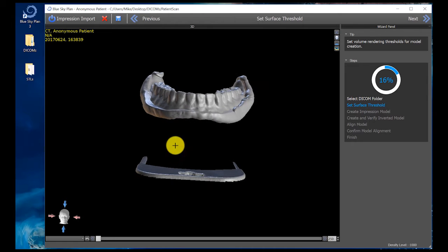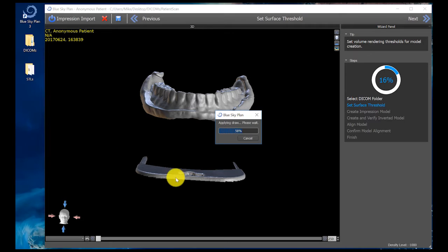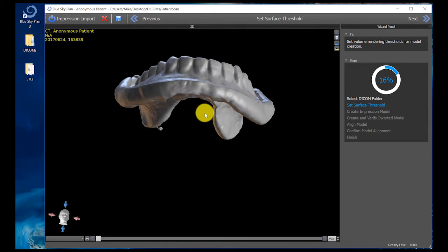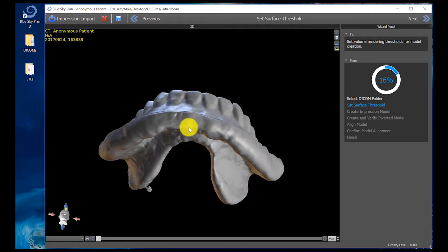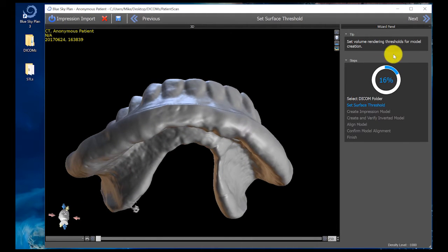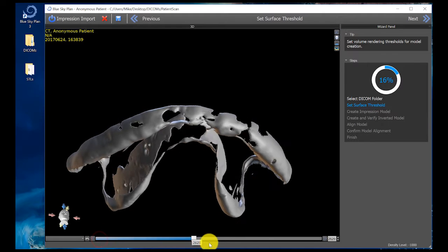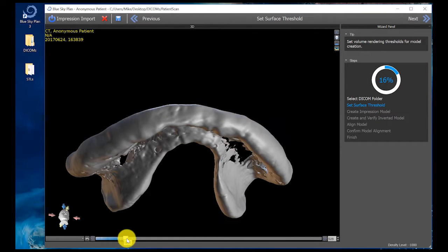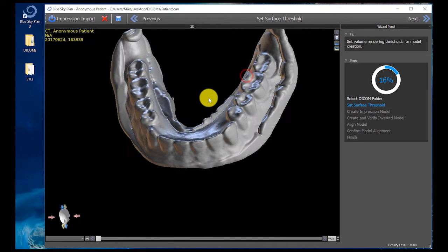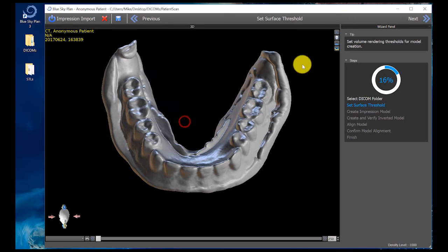After a moment, it brings in the scan showing the radiographic appearance of the patient's denture. If you want, you can hold the shift key down and cut away the little portion at the bottom, which is just the chin cup from the cone beam scanner. Using left click and hold, you can rotate the image around, and using the wheel or right-click button you can zoom in and out. Bring the slider around to show the maximum amount of data visible — typically the slider goes all the way to the left for this technique. Then click Next.